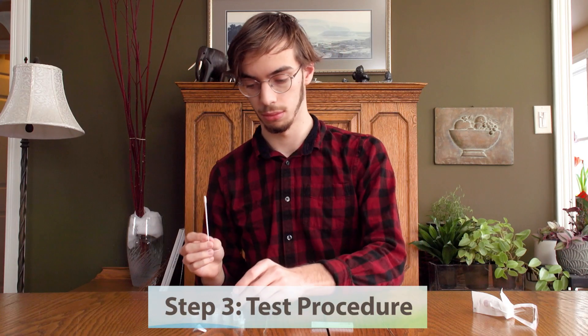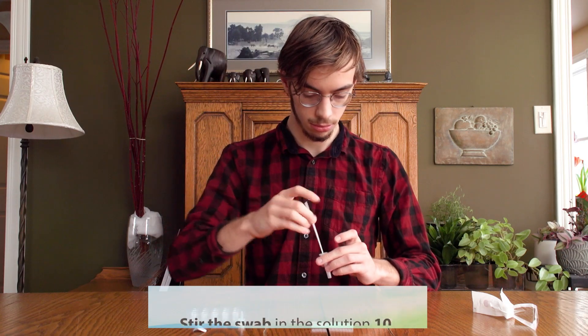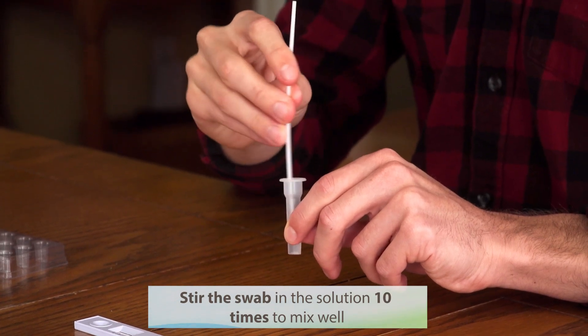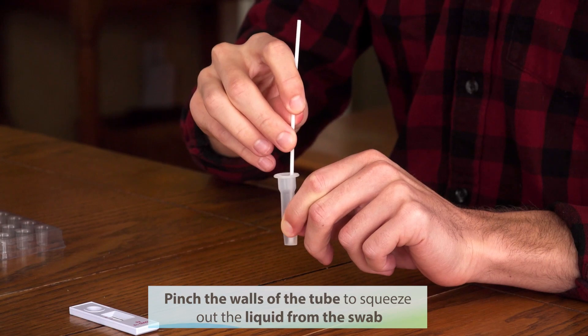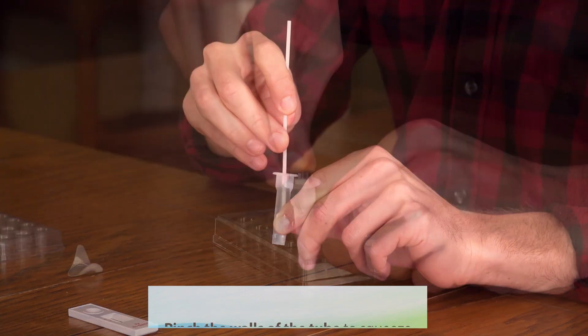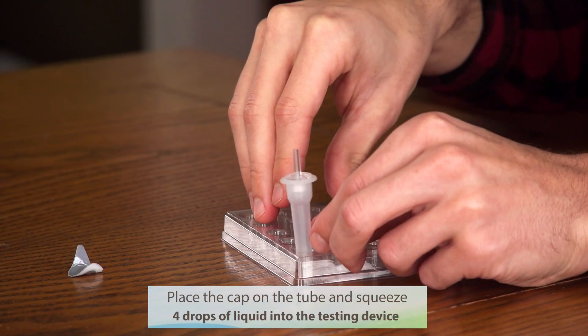Step 3: Test procedure. Stir the swab in the solution 10 times to mix well. Pinch the walls of the tube to squeeze out the liquid from the swab.